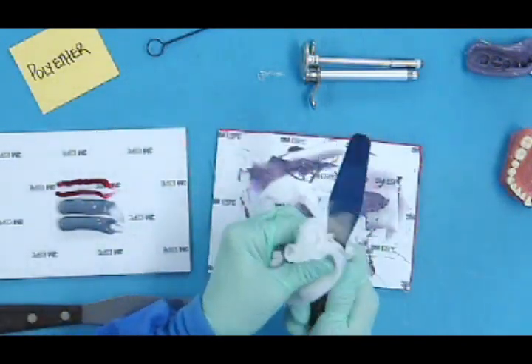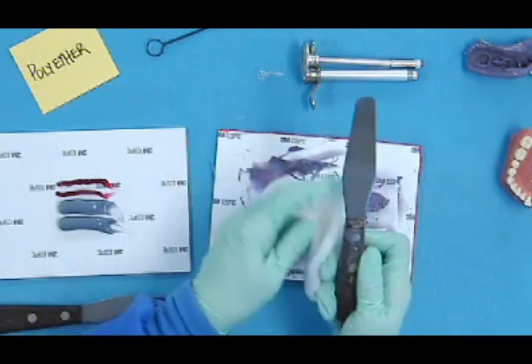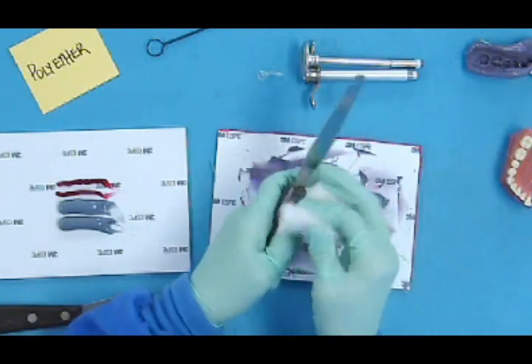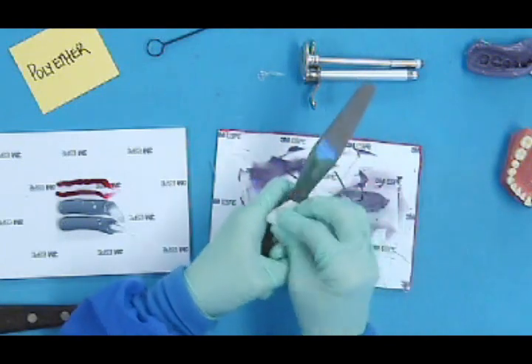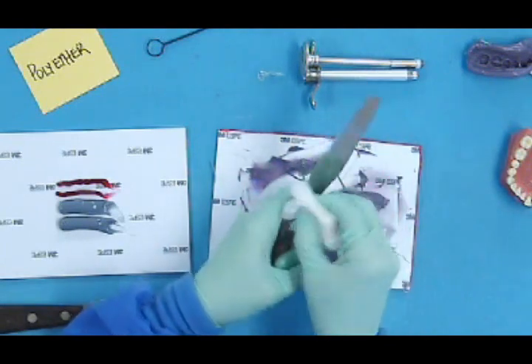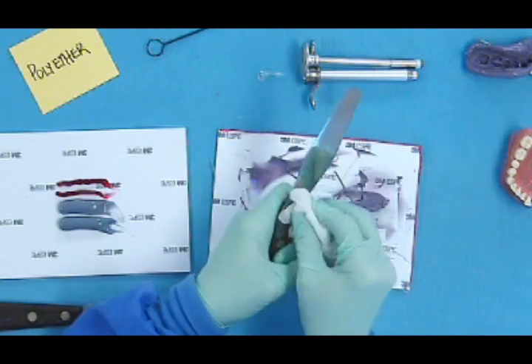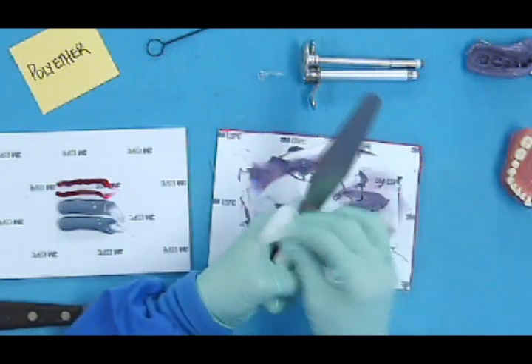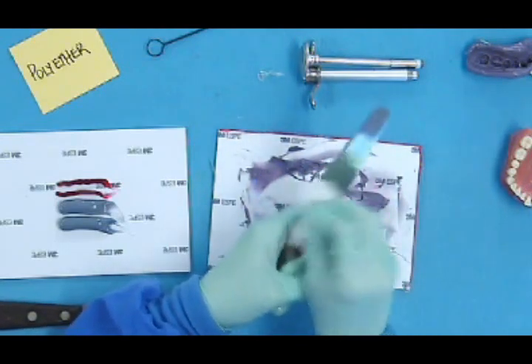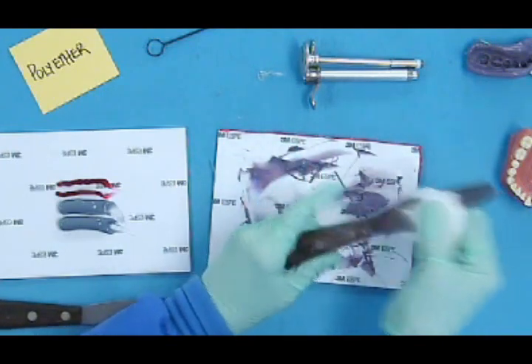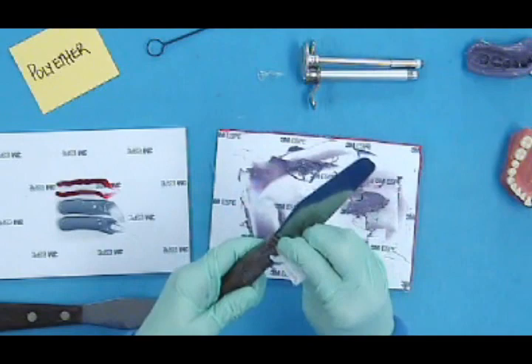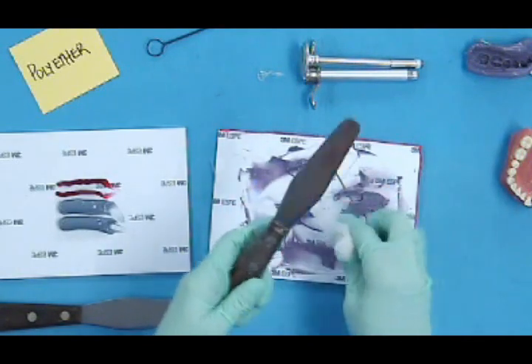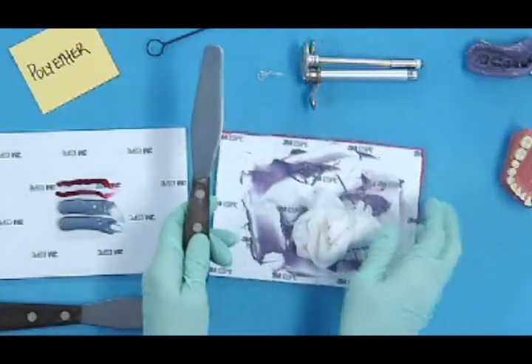And it takes a little bit of work sometimes to get it clean. But you always want to clean it between each use and not let it build up over time. There we go. We've got basically a clean spatula to start with. We would sterilize it for another patient use.